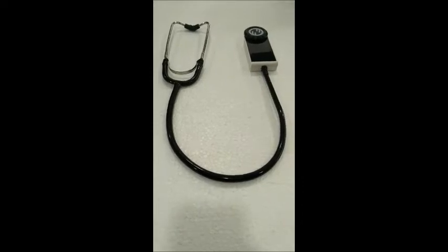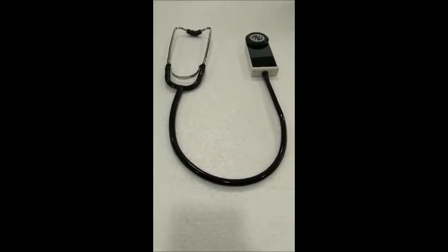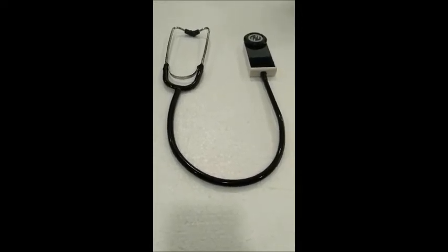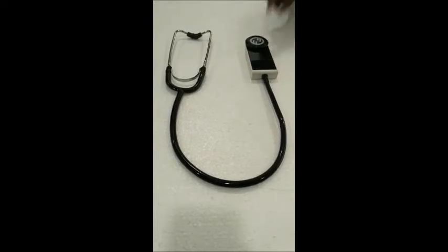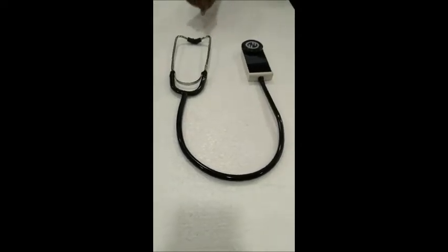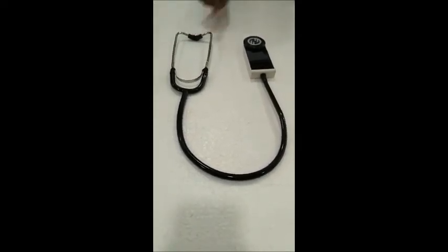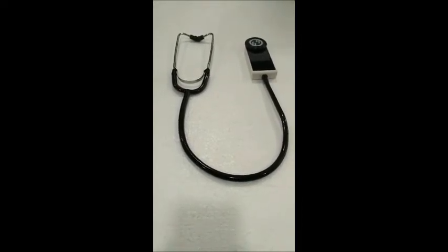This is our digital stethoscope, which is used as a diagnostic aid for physical assessment of a patient. Here we explain the parts and functions of the device. This is the chest piece or the diaphragm, to be placed on the chest to acquire the heartbeat. This is the earpiece. The acquired sound can be heard by the physician once he plugs the earpiece to his ears.